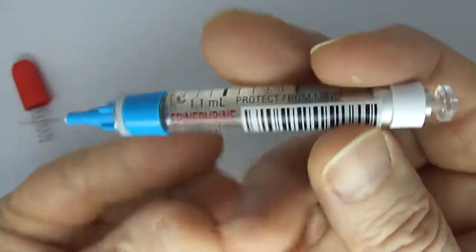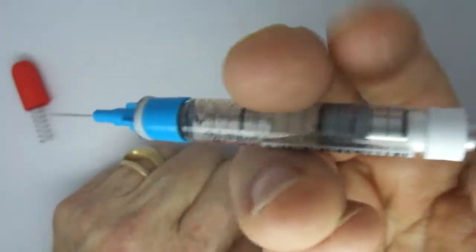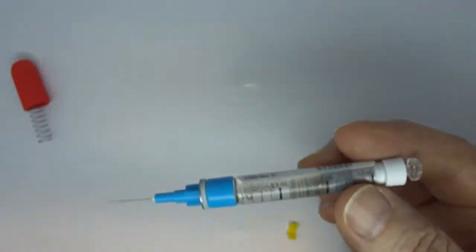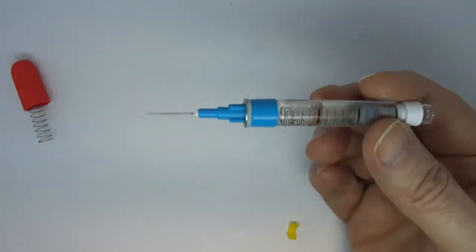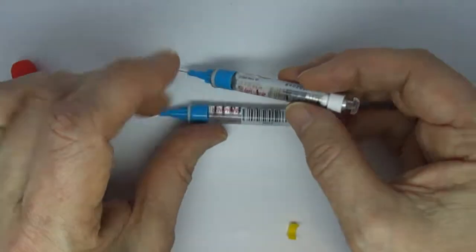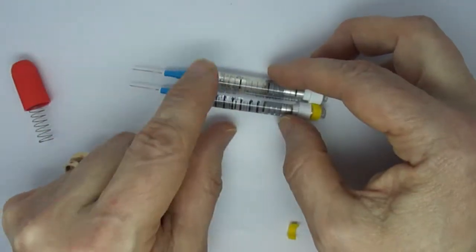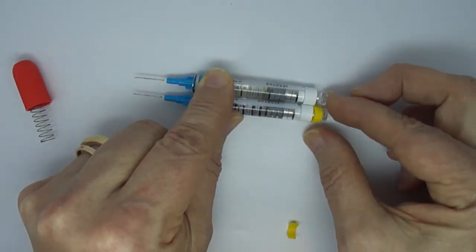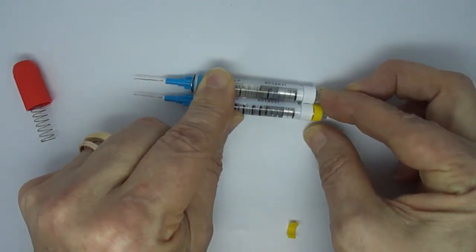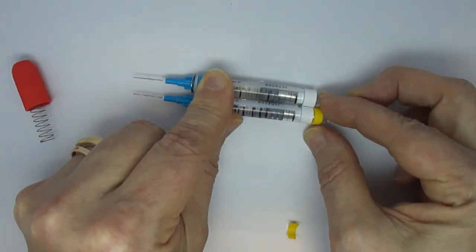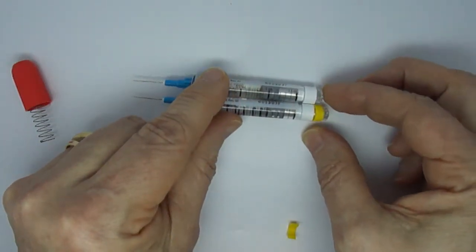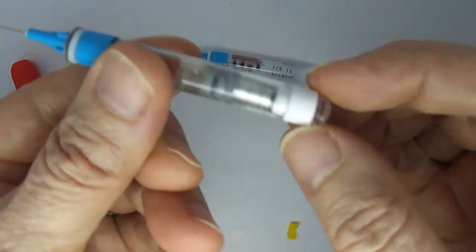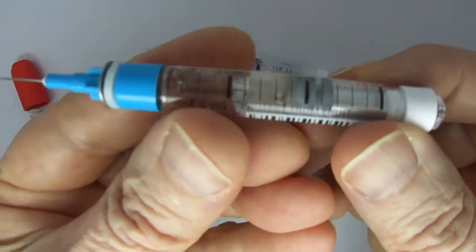And then if I just plunge this, that is probably plunging it about the amount that I marked on that other syringe. I'm going to see if that is true. That looks like that might be. That dose from where the plunger left off to where I just plunged it down might have delivered one more dose.